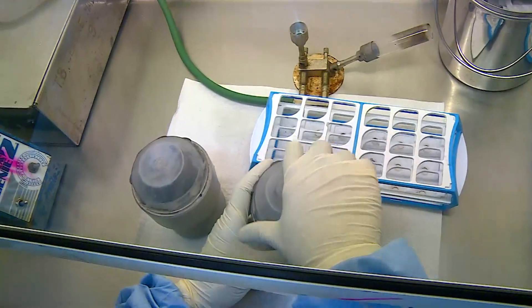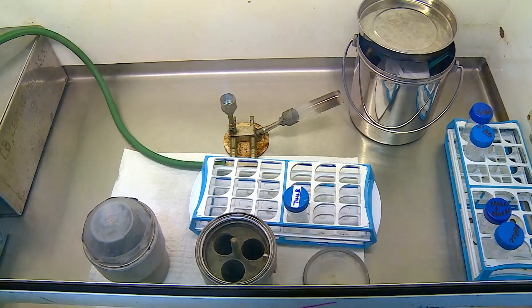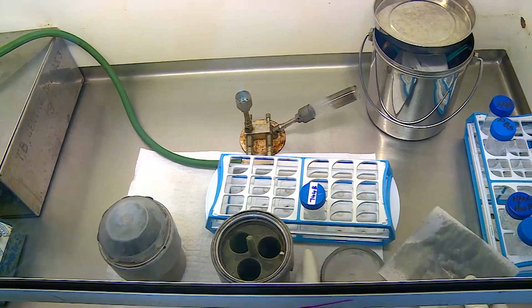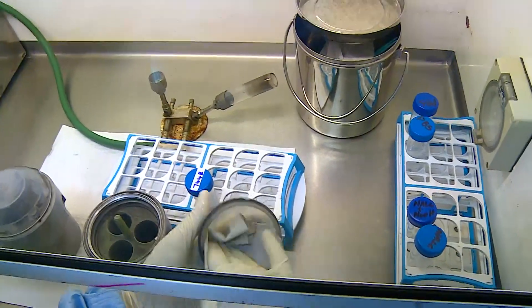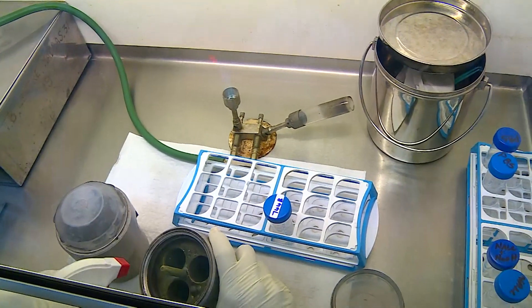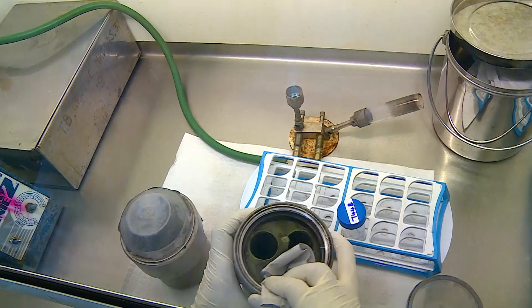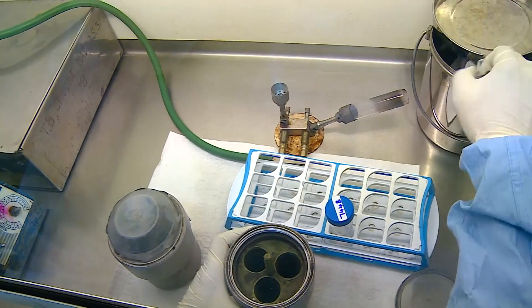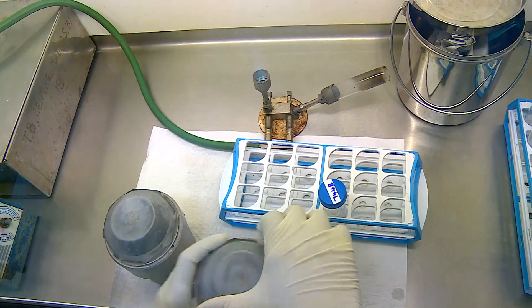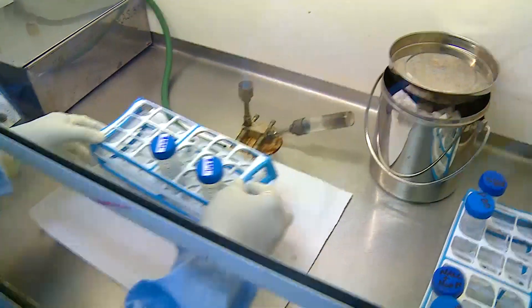Once centrifugation is completed, the buckets are brought out, the sample is removed, and the interiors of the buckets are wiped with the disinfectant. This is very important because any aerosols generated during centrifugation — for example if the cap of the tube was not closed properly — will be eliminated by treatment with the disinfectant.